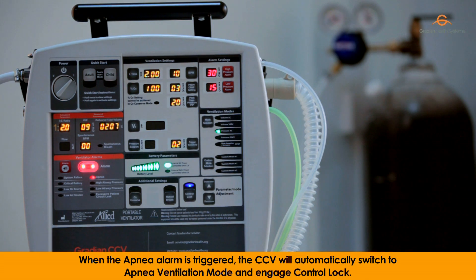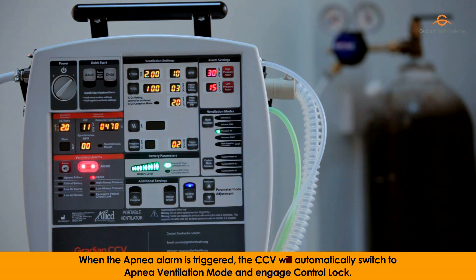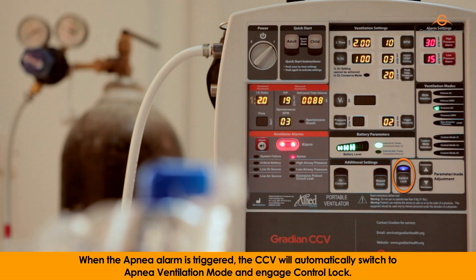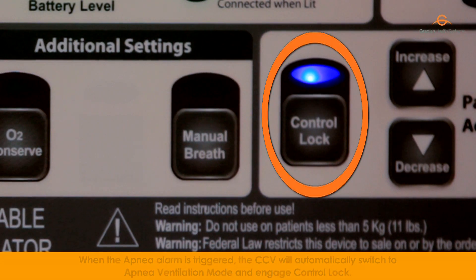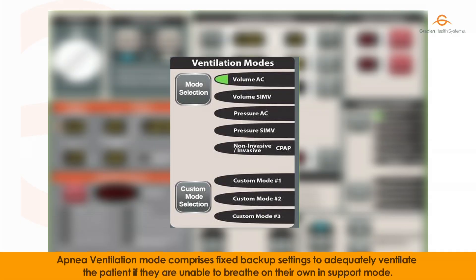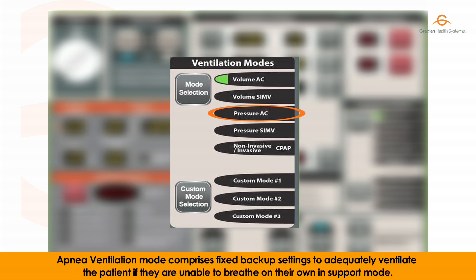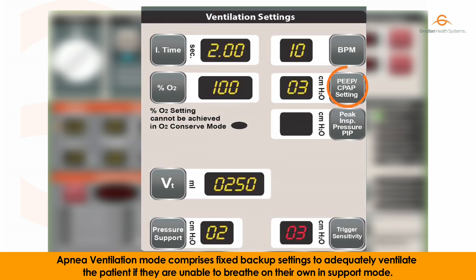When the apnea alarm is triggered, the CCV will automatically switch to apnea ventilation mode and engage control lock. Apnea ventilation mode comprises fixed backup settings to adequately ventilate the patient if they are unable to breathe on their own in support mode.